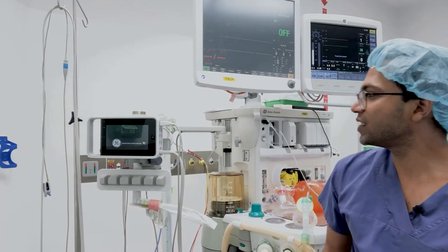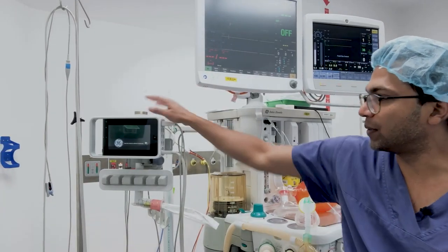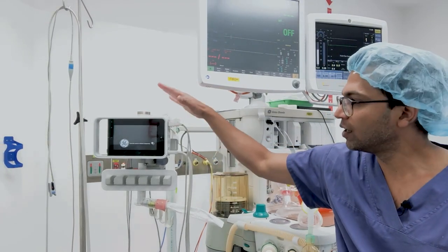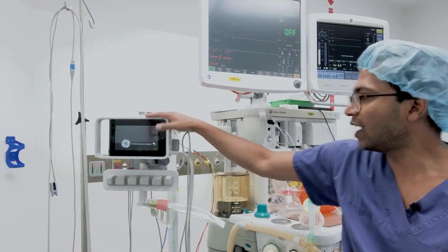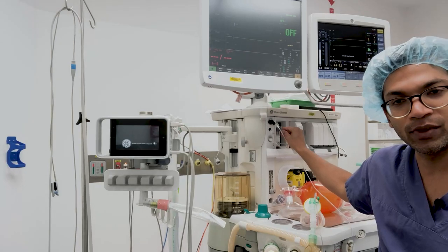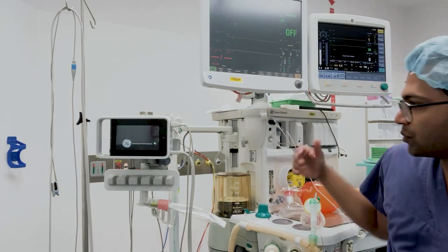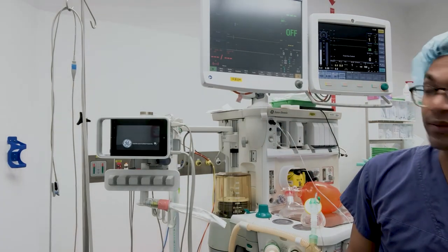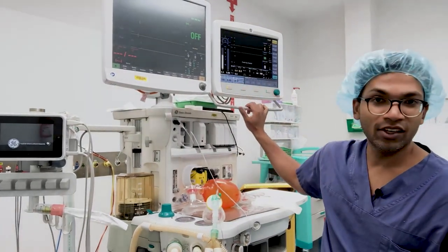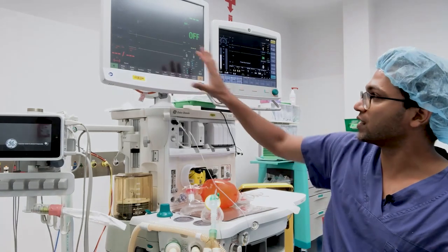This machine gets more complicated because we've got all these monitors — blood pressure, ECG, end tidal CO2, as well as SATs monitoring — and then you can dial up all these settings on these fancy screens and look at the monitor readings.